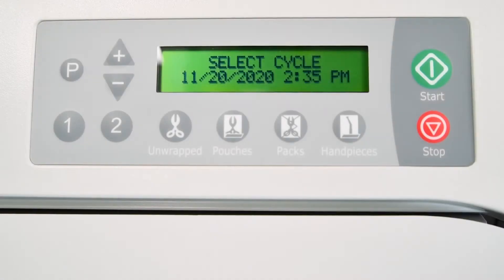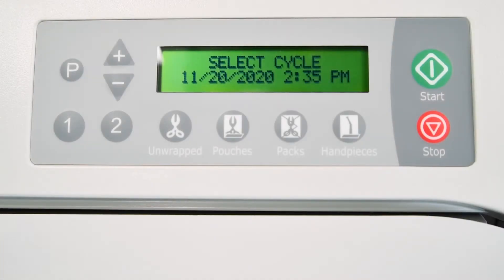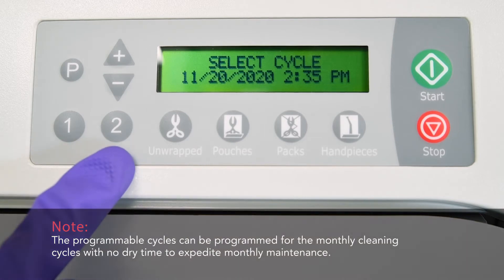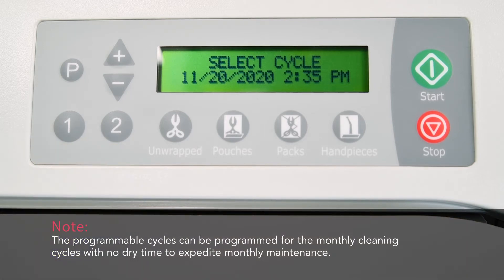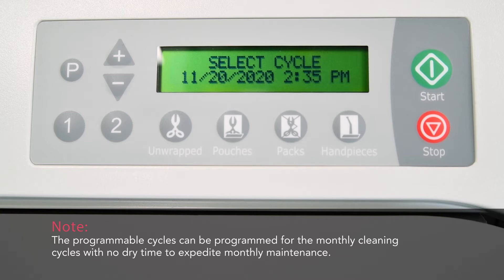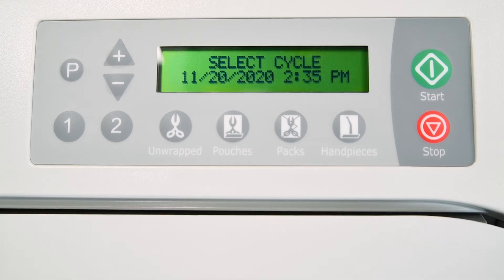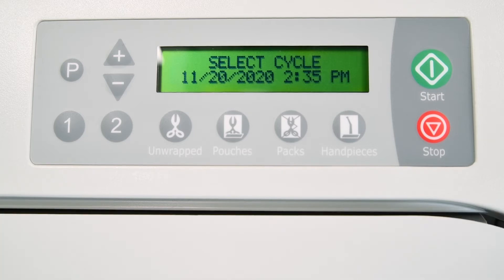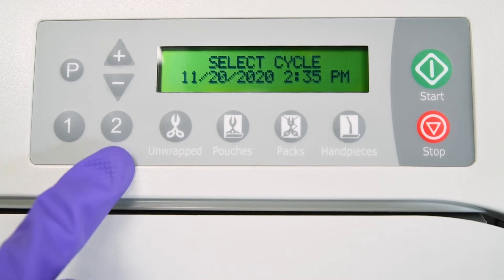Once a custom program has been stored, it can be used by pressing either the 1 or 2 button. If you wish to change the custom cycle parameters, these buttons may be reprogrammed at any time. To create a programmable cycle, press either the 1 or 2 button on the control panel.